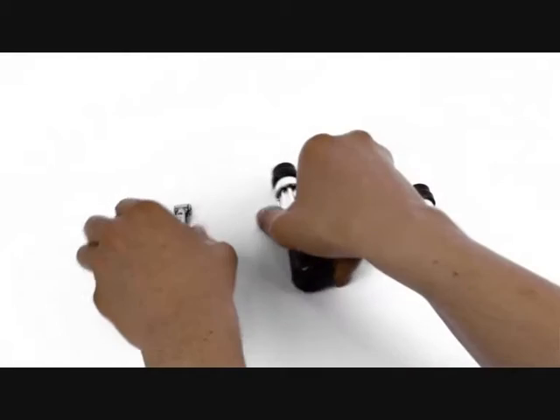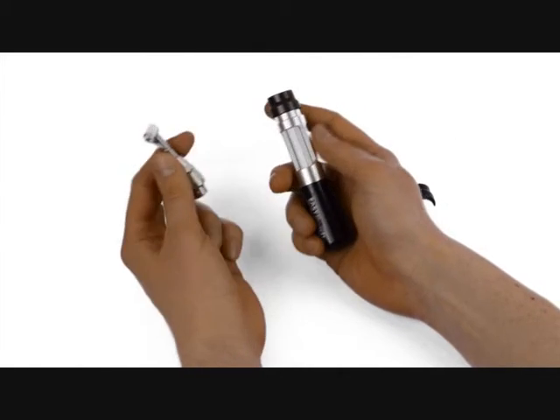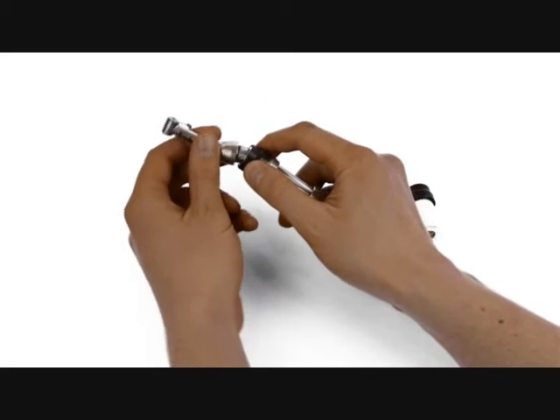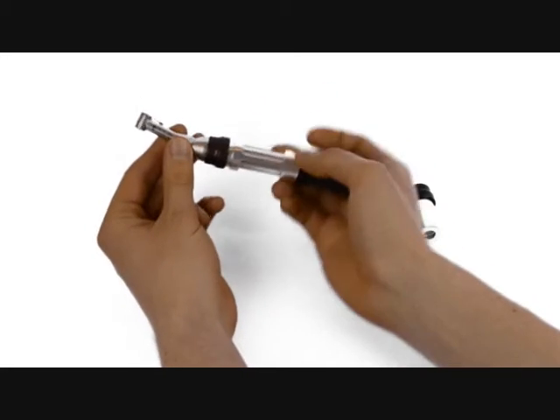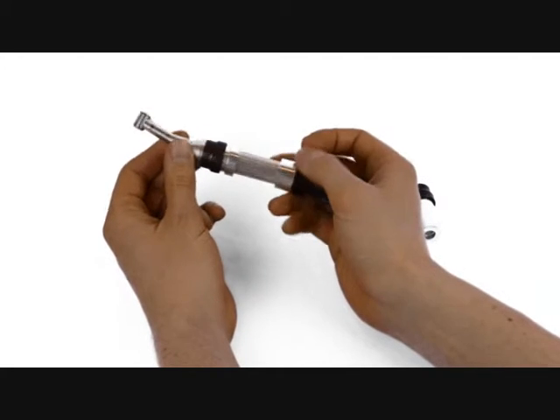So the setup is really easy. Retract the black section of the body and then insert the handpiece onto the body so it's all connected and you're ready to go.